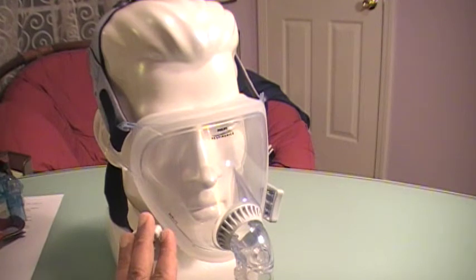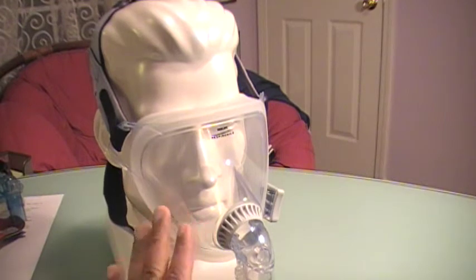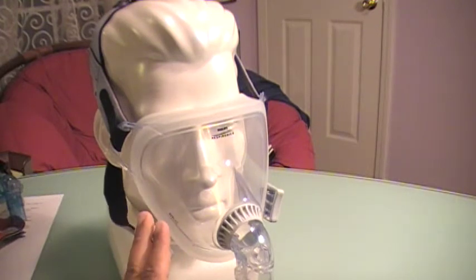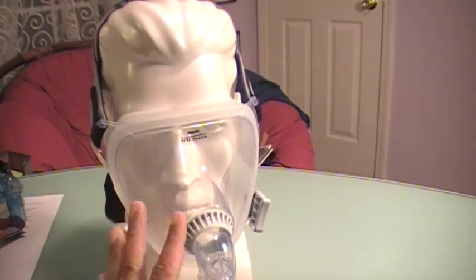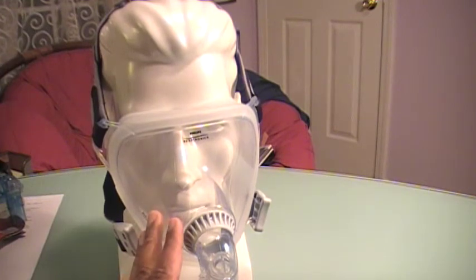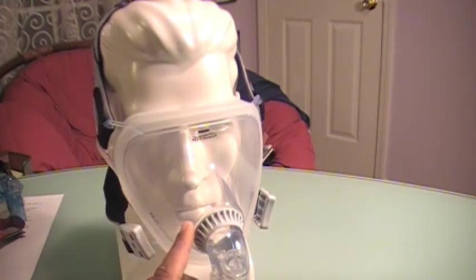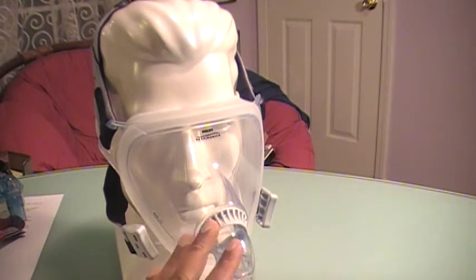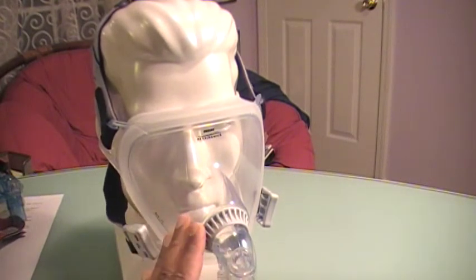Do not try to use this mask while reading in bed or watching TV — I believe it will affect your eyes and make them irritated. If you're suffering from claustrophobia, this is definitely not the mask for you. This is also not good for a person who's active in bed, who tends to roll around and move around a lot.